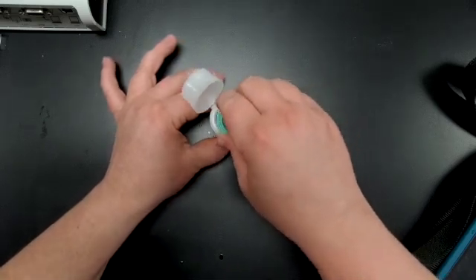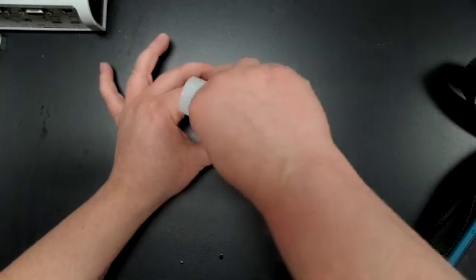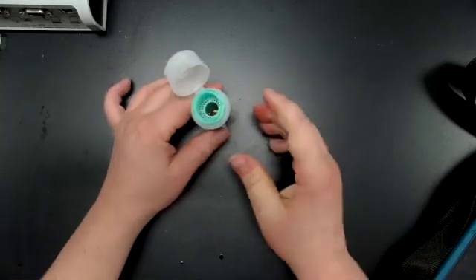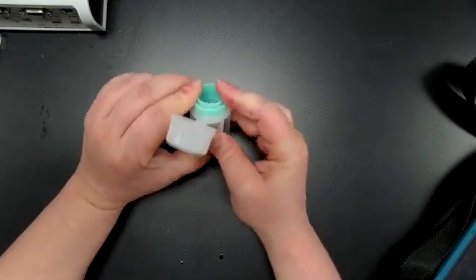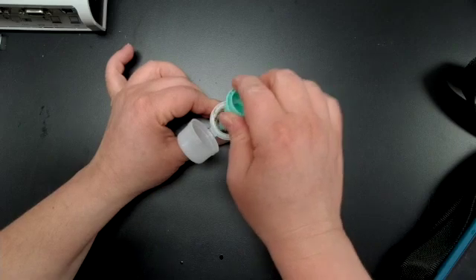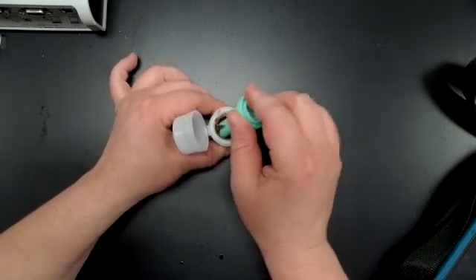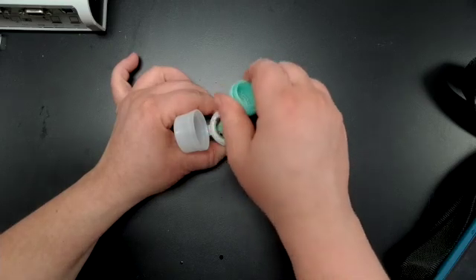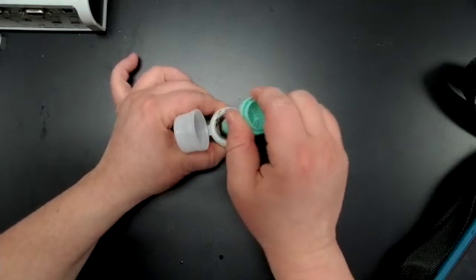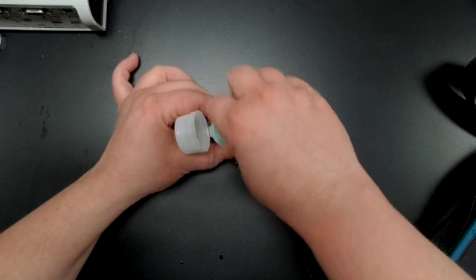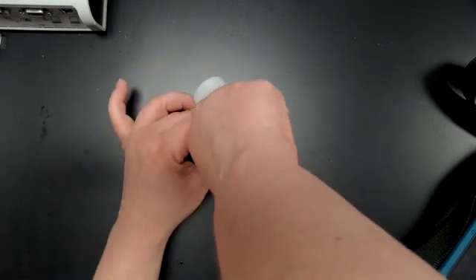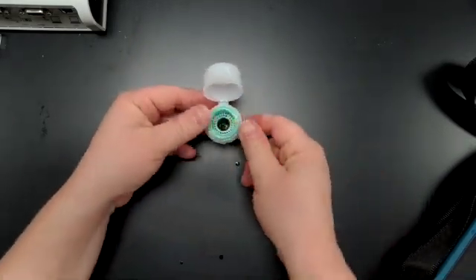Okay, everything is pretty much ground up. So I'm going to then insert and push down that insert all the way, making sure that there's no space between that insert. So I need to make sure that my feces is ground up even a little bit more than it is. Alright, so it's in there pretty well.